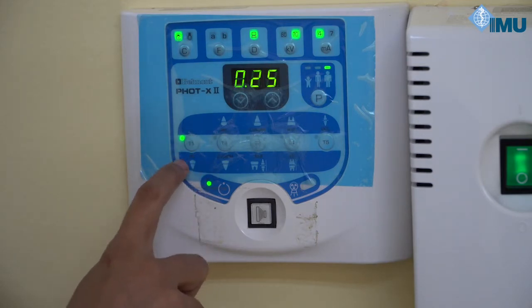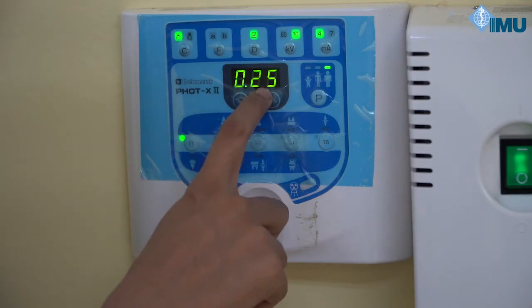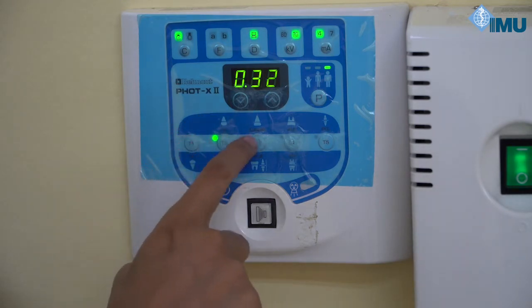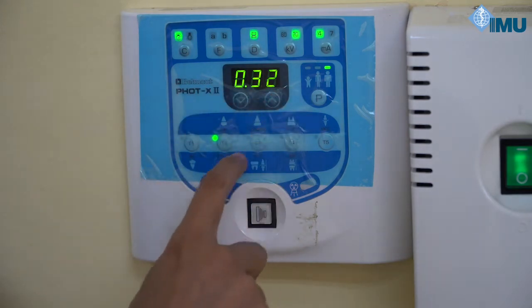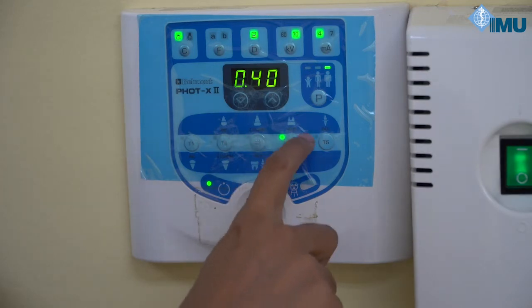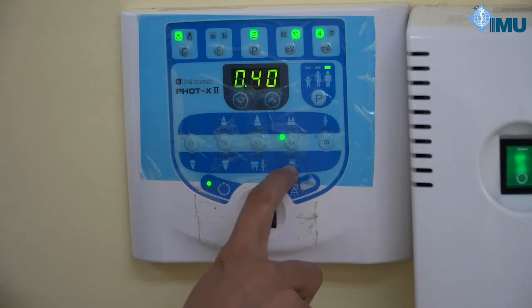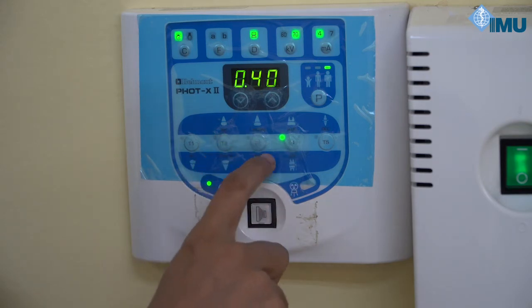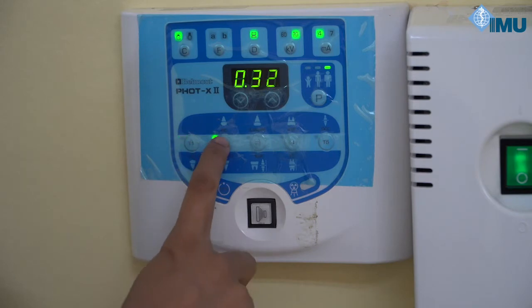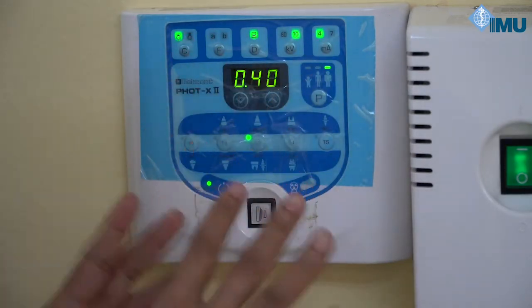Next, select the tooth number. This is for mandibular anteriors — mandibular incisors — and once you select the tooth, the exposure time is set automatically. Next are mandibular premolars and canine, then maxillary incisors. As you progress, exposure time keeps increasing. Then mandibular molars and maxillary canine and premolars, maxillary molars and posterior bitewing, anterior bitewing, and lastly occlusal. Check the tooth number and the type of technique, then set all parameters before proceeding.